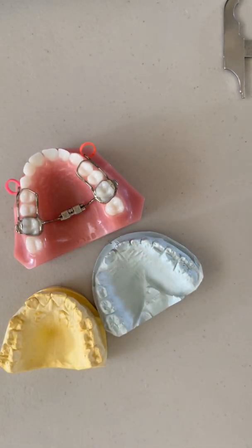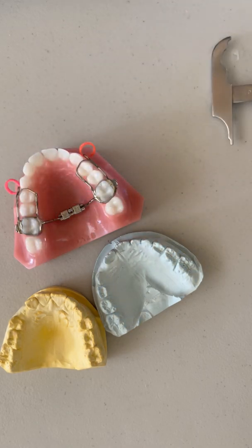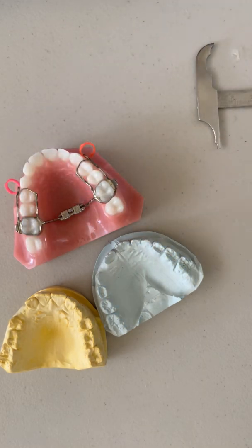This is just a rough guesstimate to help you decide expander or no expander. To me, it's always better to have more space than less — I can always close it up later, but making space is much more difficult. A nice broad smile is extremely aesthetic, healthier for the airway, and better for tongue position. You can get some arch expansion with wires or aligners, but it's not palatal or skeletal expansion, so you won't get the same airway effects as actually opening the palatal shelves. Get your Boley gauge — you can buy one on eBay for six or seven dollars. Hopefully this is helpful!